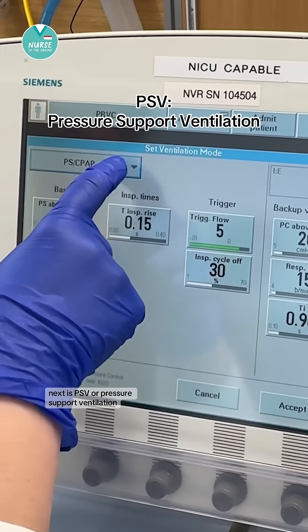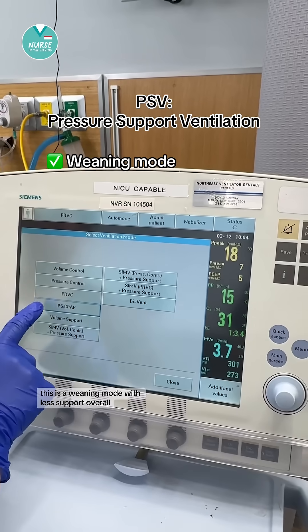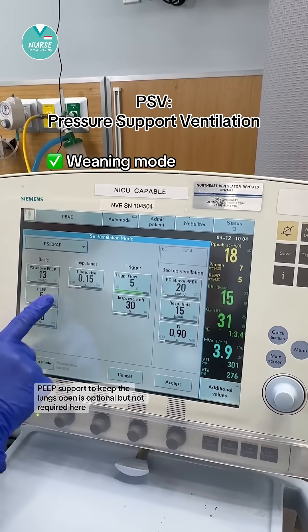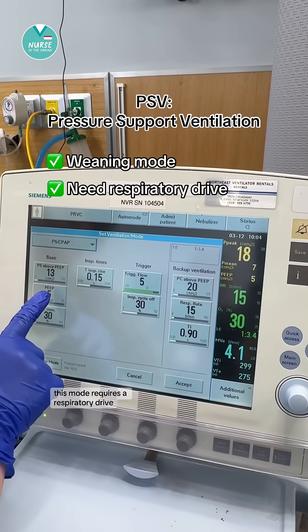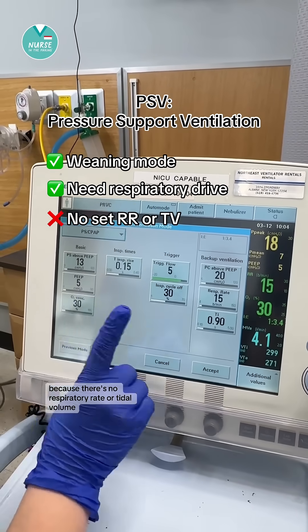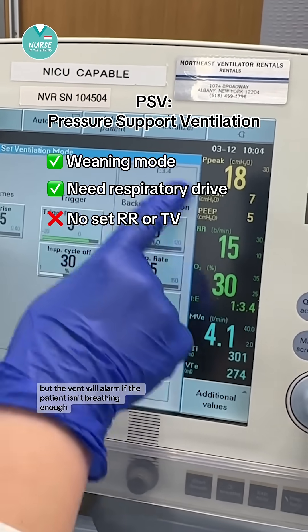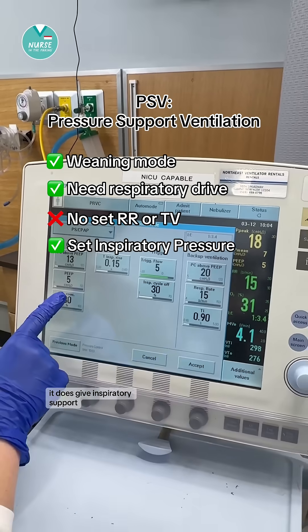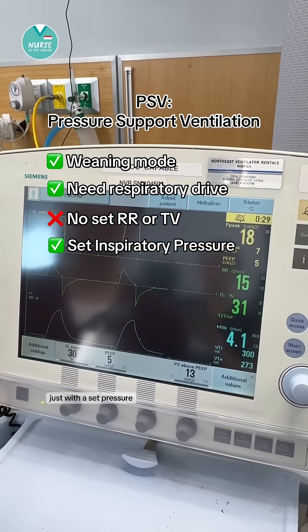Next is PSV, or pressure support ventilation. This is a weaning mode with less support overall. PEEP support to keep the lungs open is optional but not required here. This mode requires a respiratory drive because there's no set respiratory rate or tidal volume. Some vents have a backup rate, but the vent will alarm if the patient isn't breathing enough. It does give inspiratory support just with a set pressure.